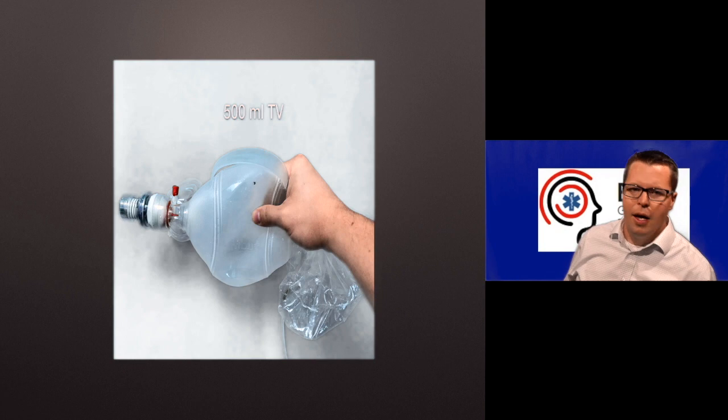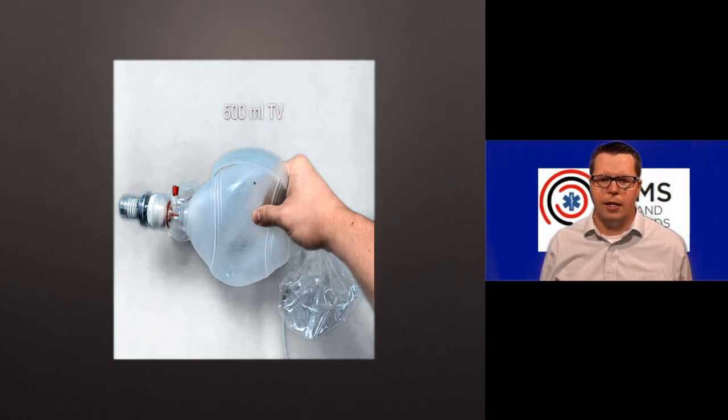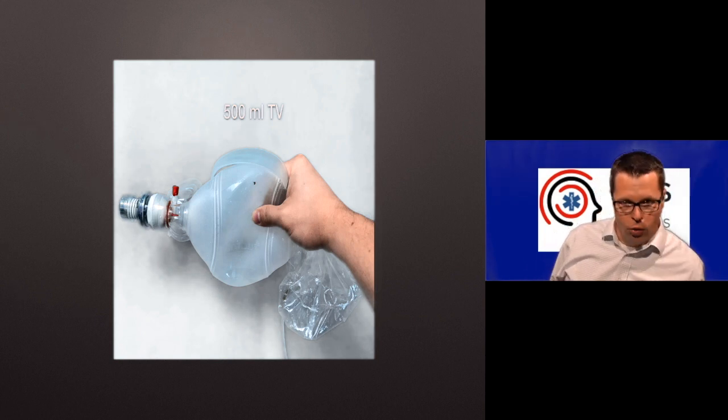You can do the same thing if you have the ability to measure volume. So if you get that opportunity, really practice on it and get to know what that 450 to 500 mL tidal volume feels like in a regular bag.